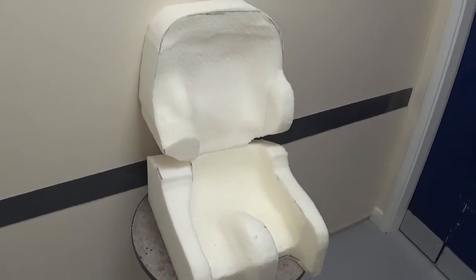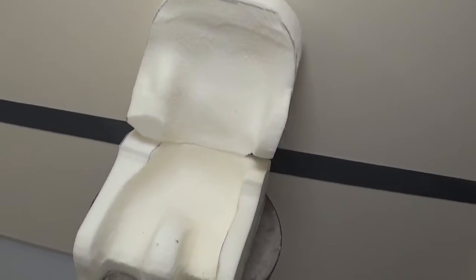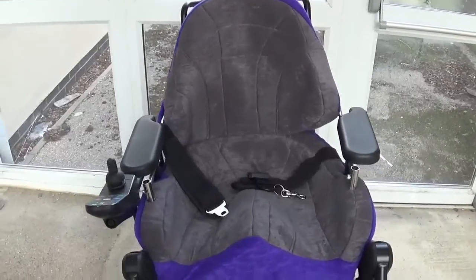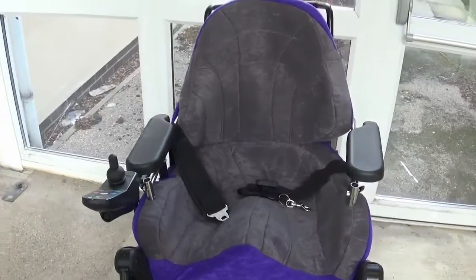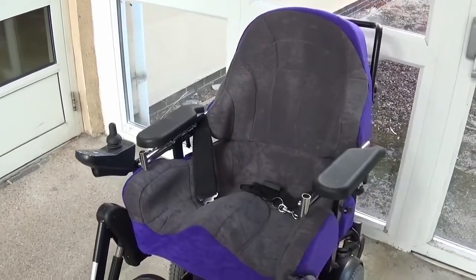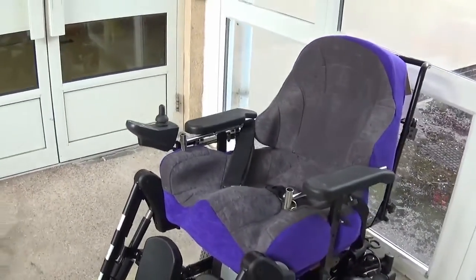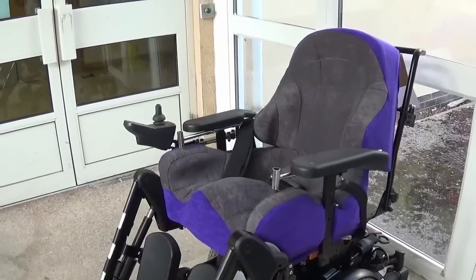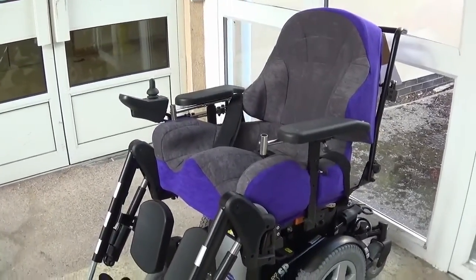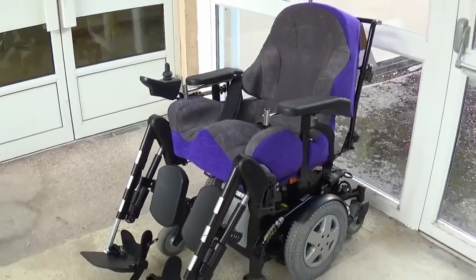An engineer can then trim it to the required size. A mid-fit appointment is usually required to make sure the shape is correct before an upholsterer makes a set of covers and the engineer interfaces the seating to a suitable wheelchair base. The finished product closely matches the client's shape, ensuring close contact to their posture, eliminating areas of high pressure, and resulting in a very comfortable seat for the individual.